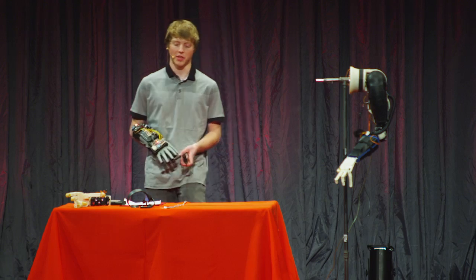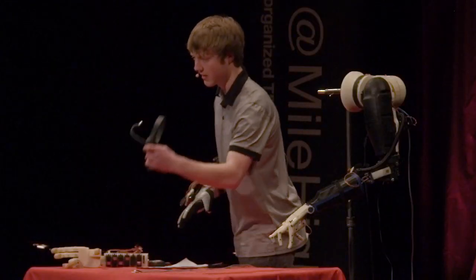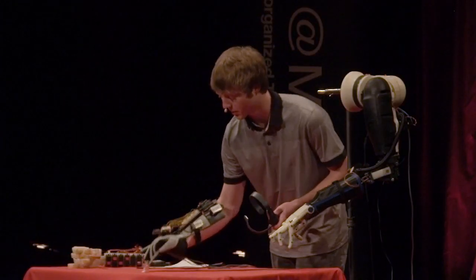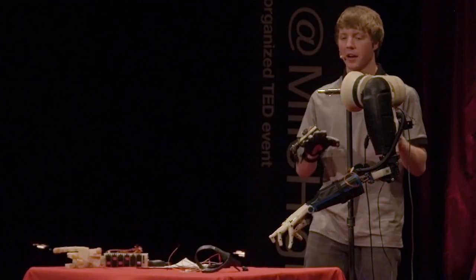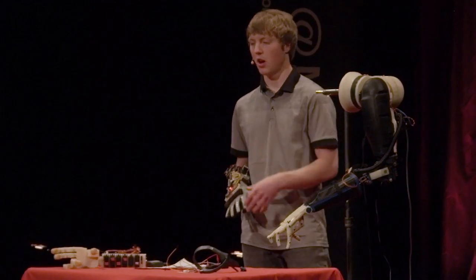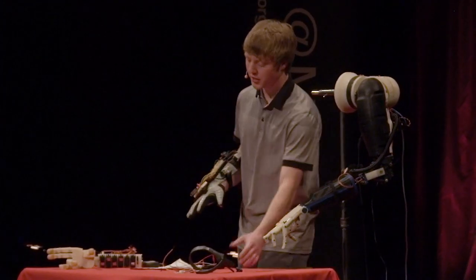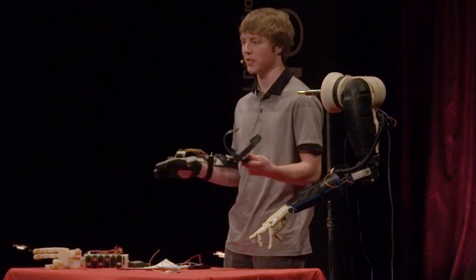My approach keeps everything external. This EEG headset and these muscle sensors together create a really accurate control system. This keeps the cost down, and you can easily conceal it within a baseball cap, making it more publicly acceptable.